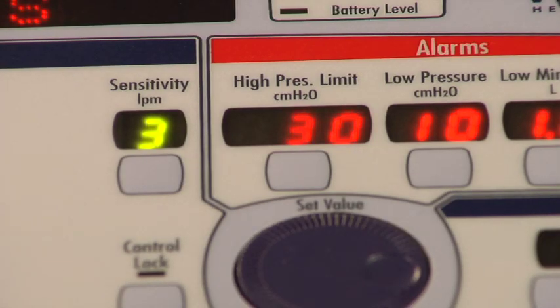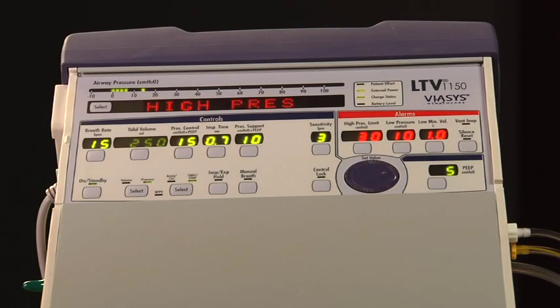An audible alarm is sounded. This means the alarm is active or is occurring now. When an alarm condition clears itself, or it is no longer in an active state, the audible alarm is silenced. For example, if the patient coughs once and sounds the high-pressure alarm, then on the next breath no alarm condition exists. The visual alarm message continues to flash in the display window, but there is no longer an audible alarm.